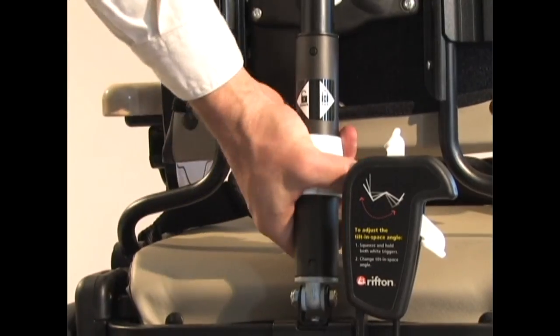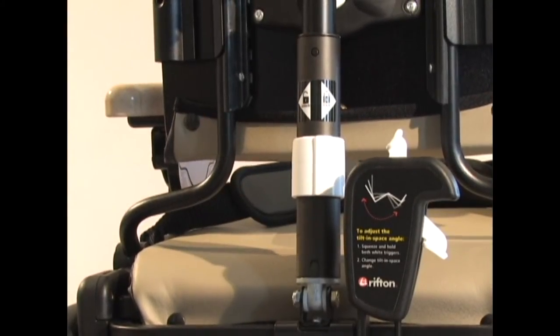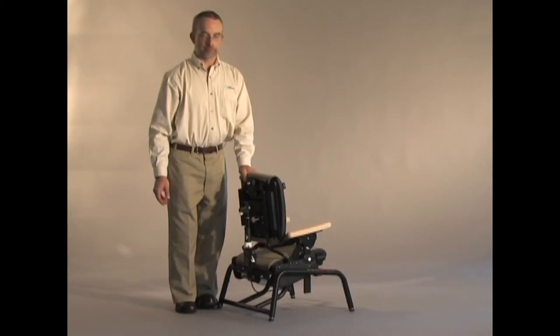Again, to lock it off, I simply rotate the handle the other way, and now it's back to a fixed backrest.